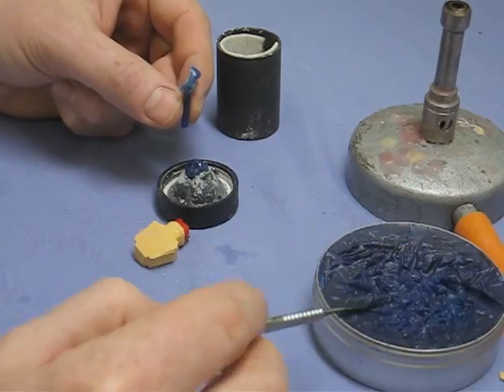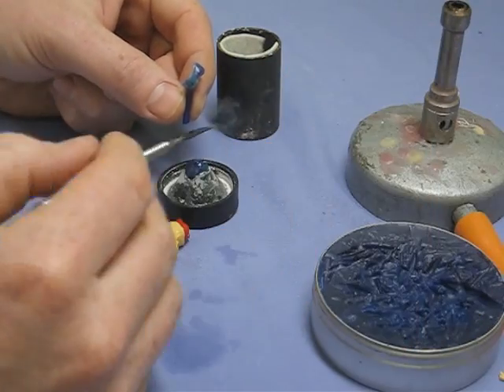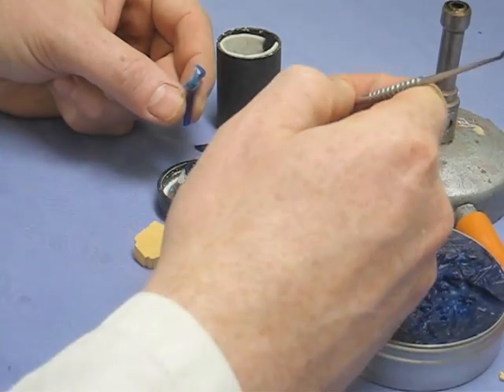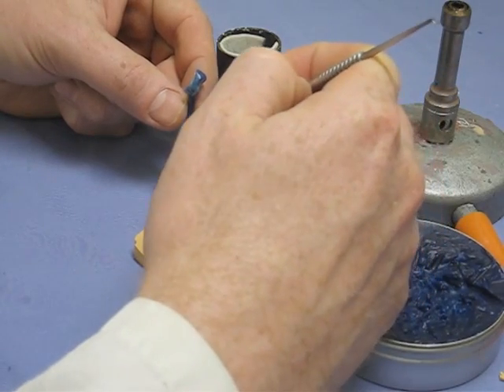Oh, too much. The sprue was a bit long there. We need the pattern about five millimetres beneath the top of the casting ring.